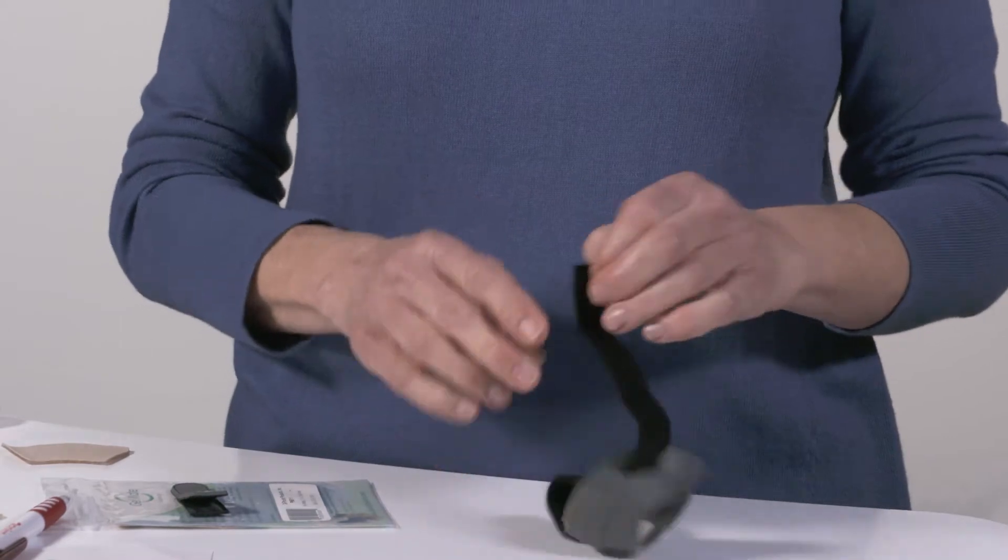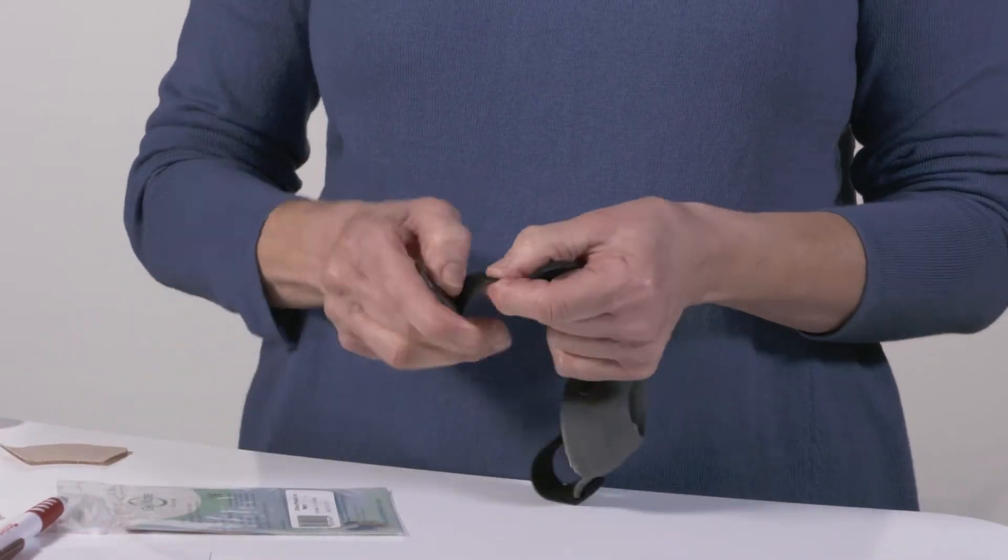Once you have the pad in place, put your strap back into the slot and put the closure tab back on.